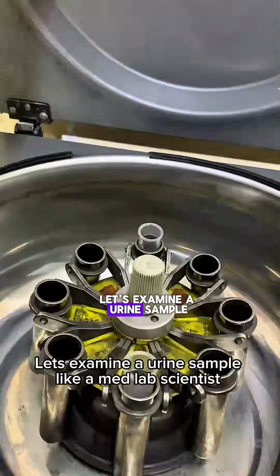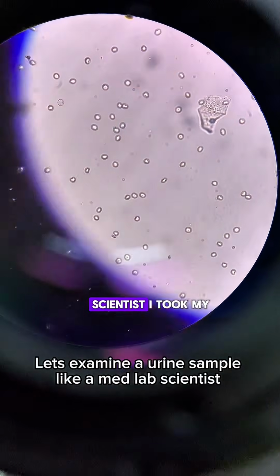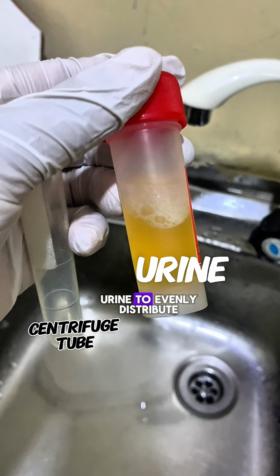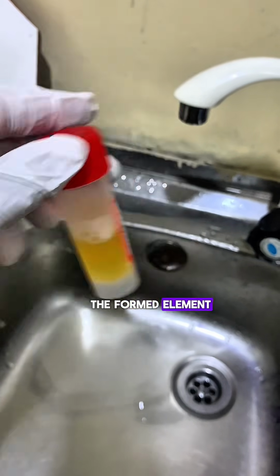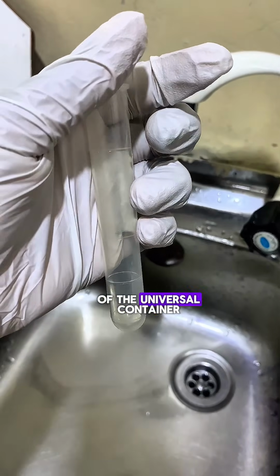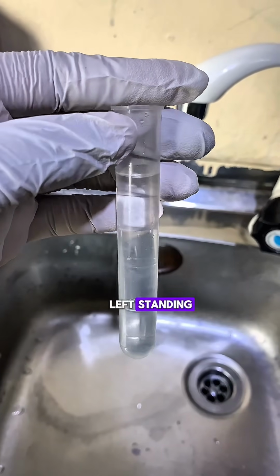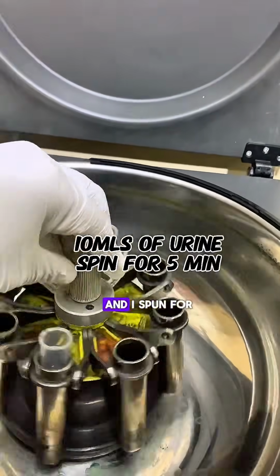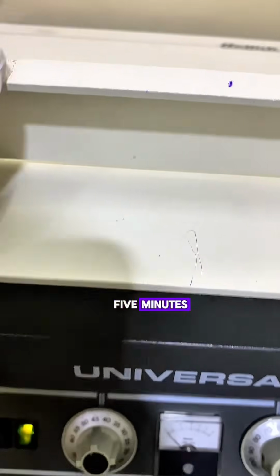Let's examine a urine sample like a med lab scientist. I took my clean catch midstream urine and mixed it to evenly distribute the formed elements, that is, elements or substances that might have settled at the bottom of the universal container whilst the urine was left standing. Then I transferred about 10 ml of urine into the centrifuge tube and spun for 5 minutes.